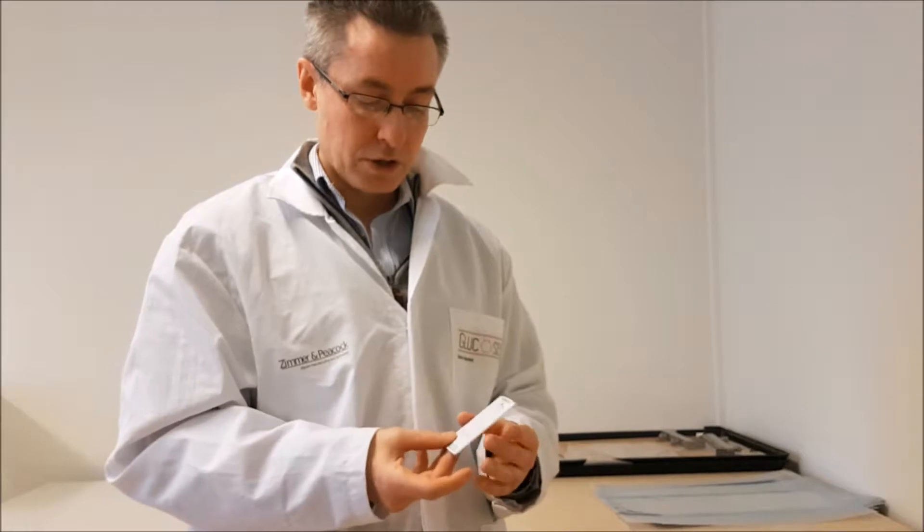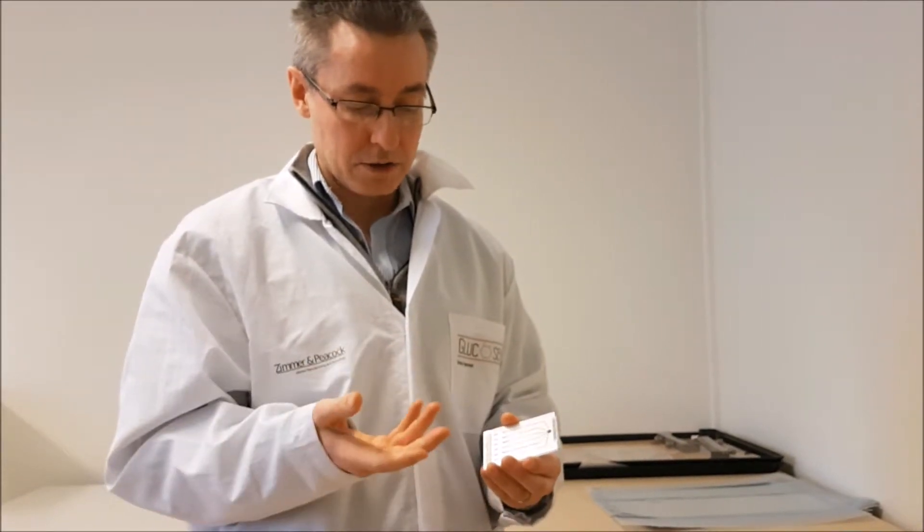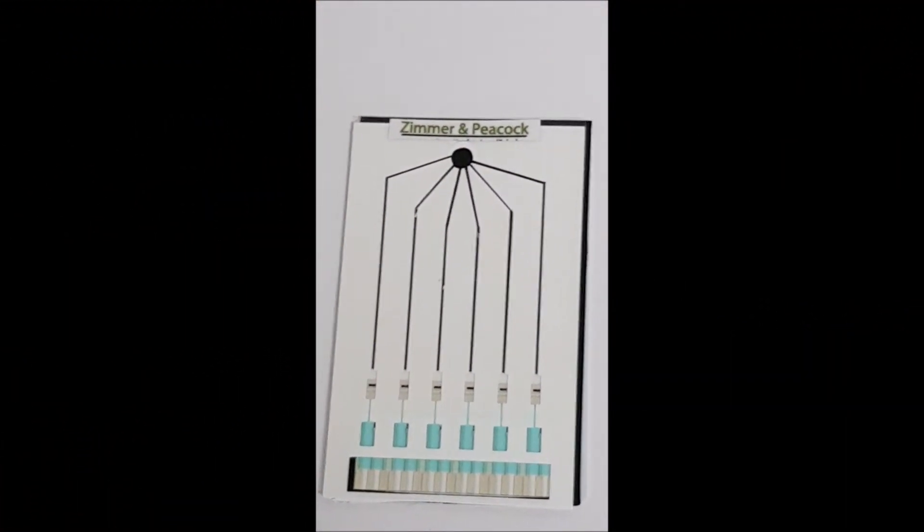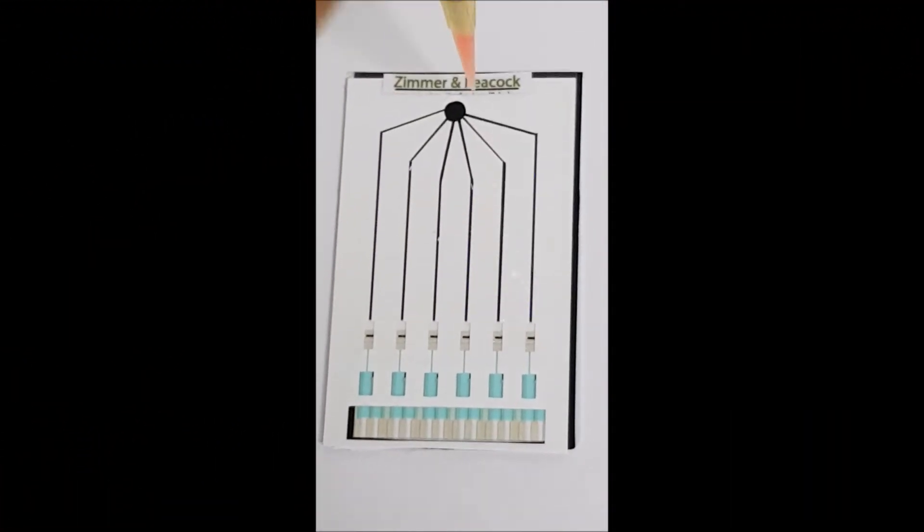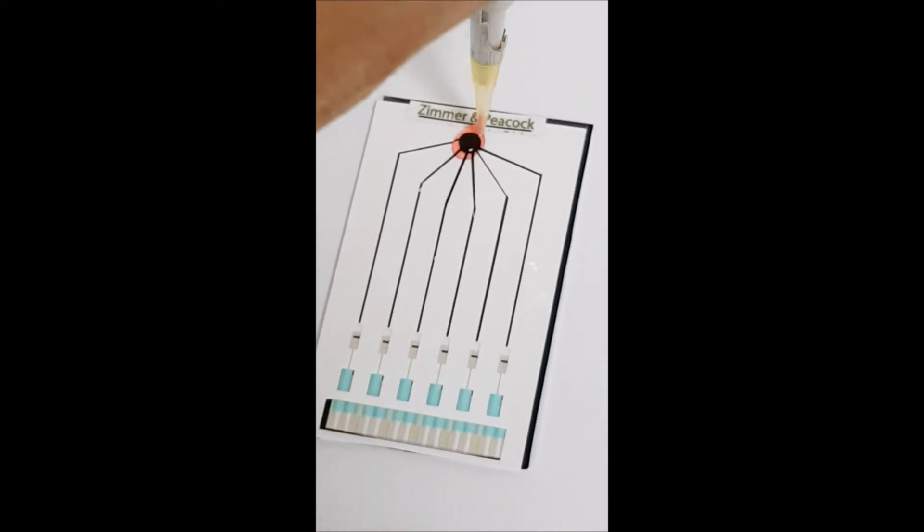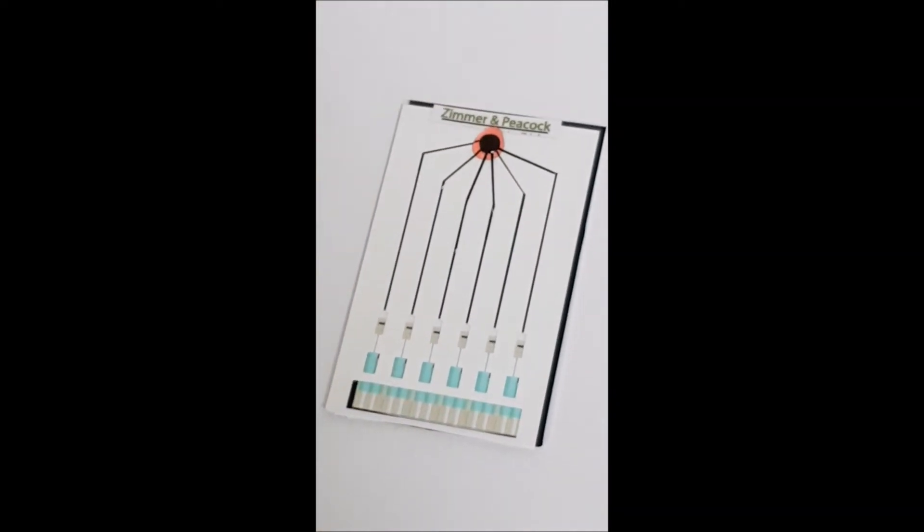So if you're interested in doing this parallel determination and you want a low cost platform and you want a technology partner to help you develop and manufacture it, then please contact us at Zimmer & Peacock. This is a quick demonstration. We've got a credit card format that leads to a low cost sensor.